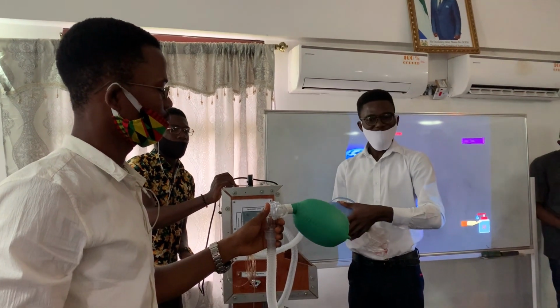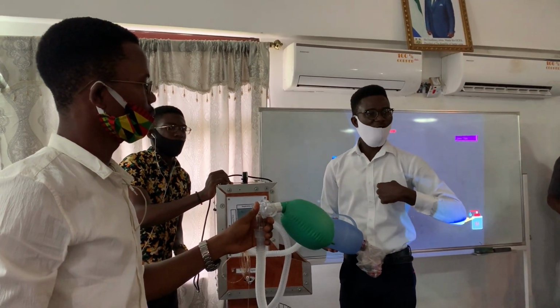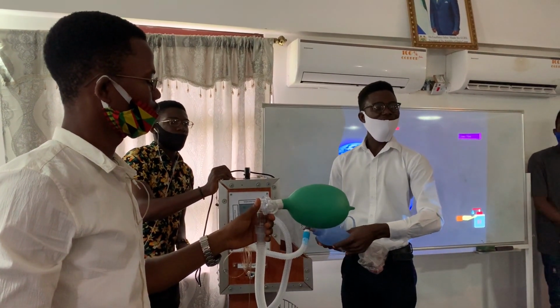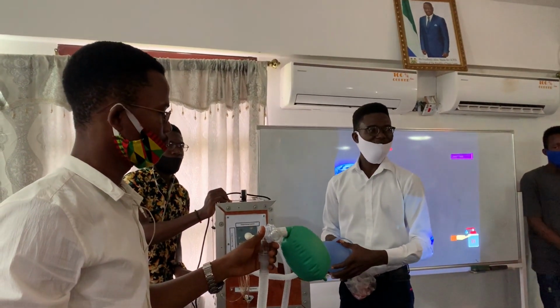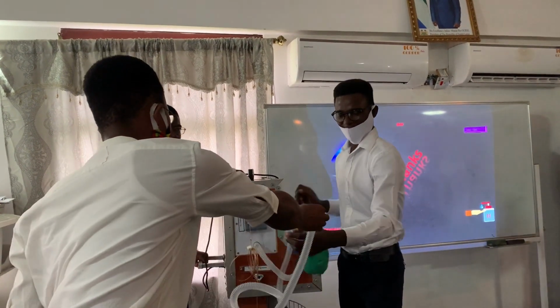Yes. So whilst you are performing this action, you assume you are now the patient. You gauge your own breath rate as with the compression here. When you're breathing in, squeeze. When you're breathing out, you may release. And then you can see the balloon there just giving out the air as the patient gives out the exhaled air. I almost forgot that one.